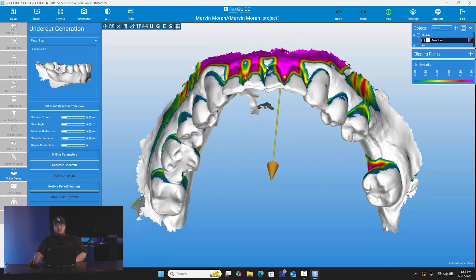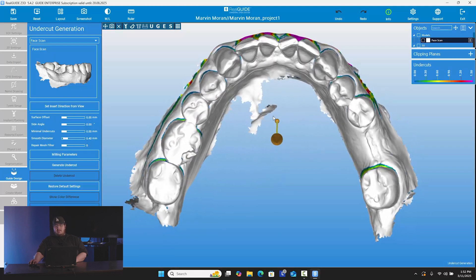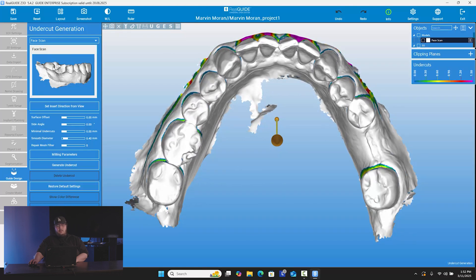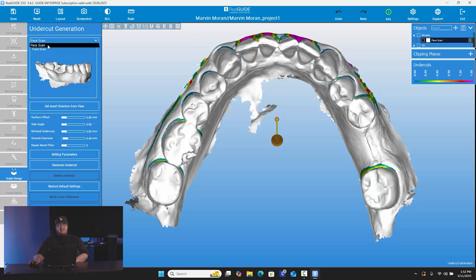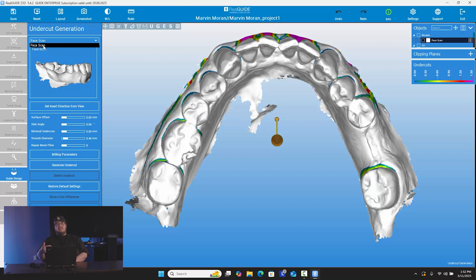Here we're in the phase where we're going to create the blockouts for the actual model we're going to be using. On the left side, you'll see we have the model we want chosen, and we only have one scan brought in. But if you have multiple scans brought into this case, or you've duplicated this, or made a model or anything like that, every time you create a new object it will be added to your object list, which will also be added to this list on the top left. It's always important to make sure that you have the right one selected so that you're using the correct model and the correct scan to move forward.